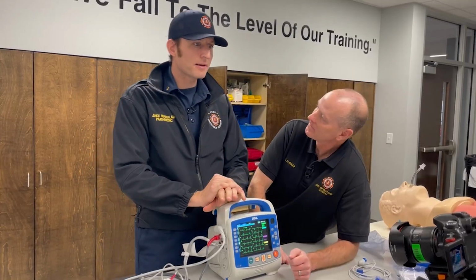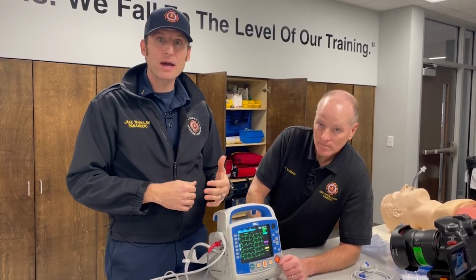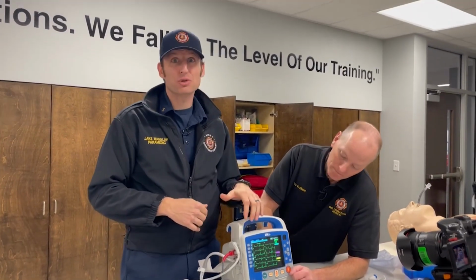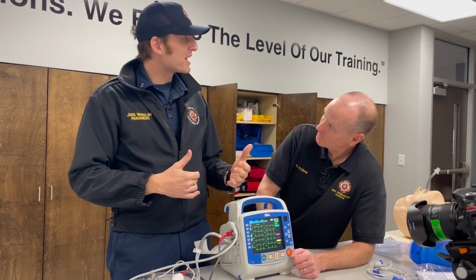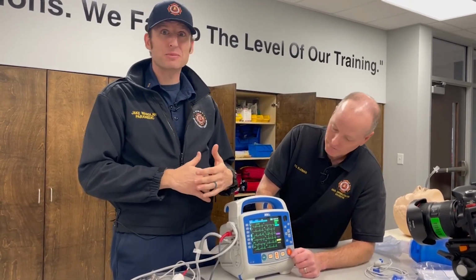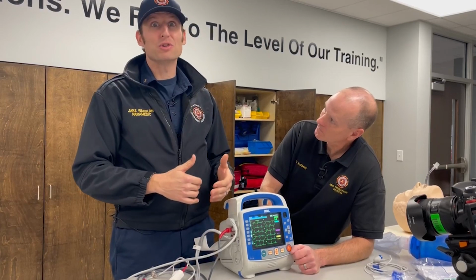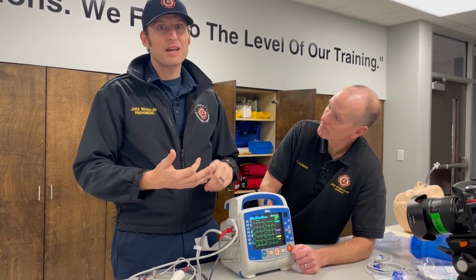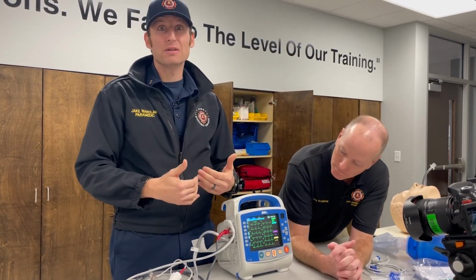And I'll tell you, the reason I brought that up, and I say this not in a bad way, but it can make for bad practices in the sense that you could take this screen away. As a department, I think we are pretty progressive. We want our guys to learn, we want our guys to be knowledgeable, especially when it comes to any practice that we do, this included. What I'm getting into is demographics. You're about to see what, when you hit the demographic button, meaning patient information, names, gender, ages, what that does to the screen.